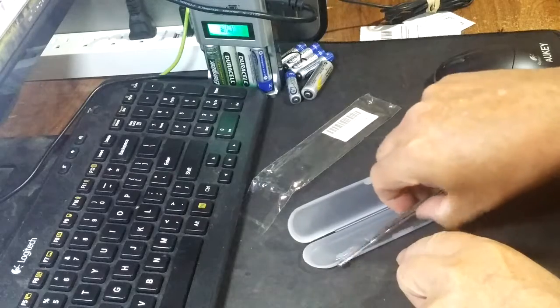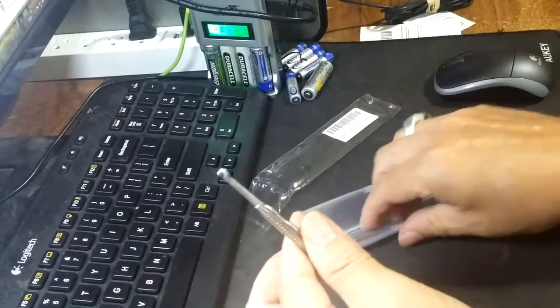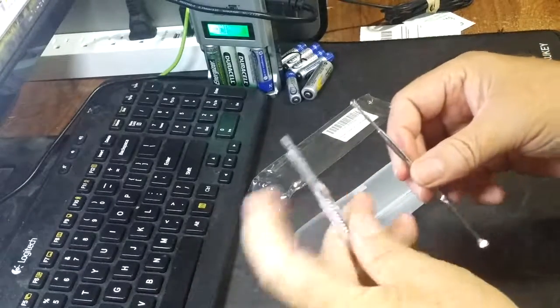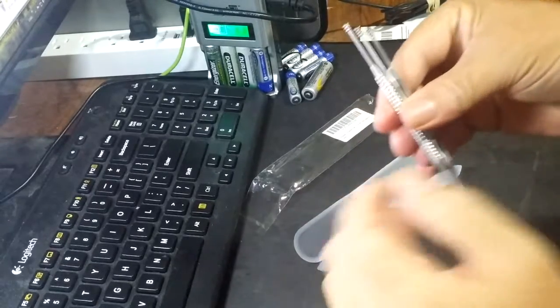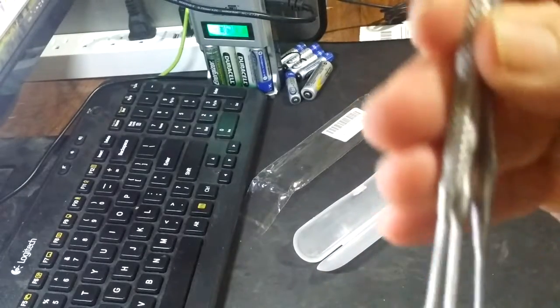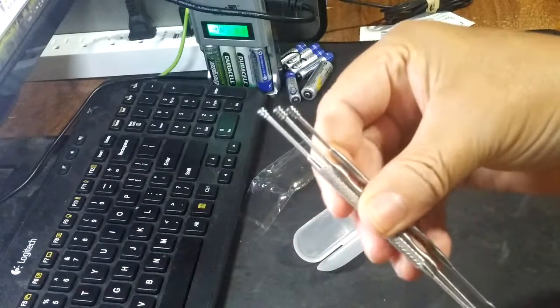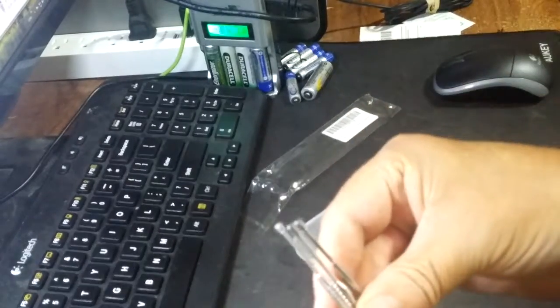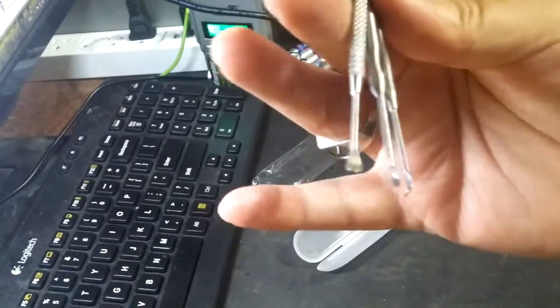These are definitely unusual. My mother is 88 and has all her life had to wear hearing aids — hearing impairment. And the last time that we took her over to the audiologist to have her aids and ears checked, we used some of these to scrape out an ungodly amount of buildup.